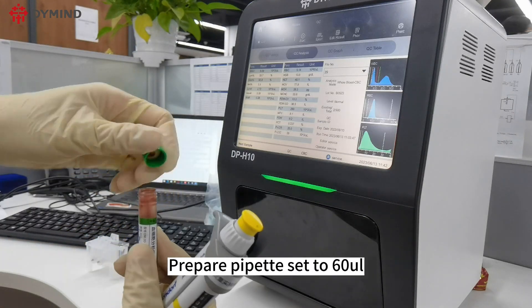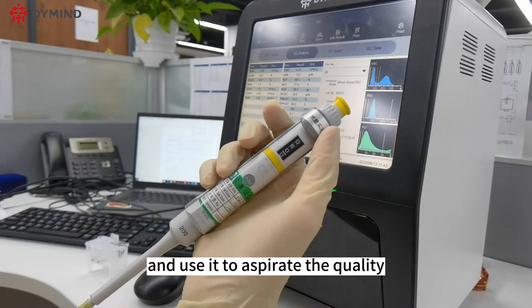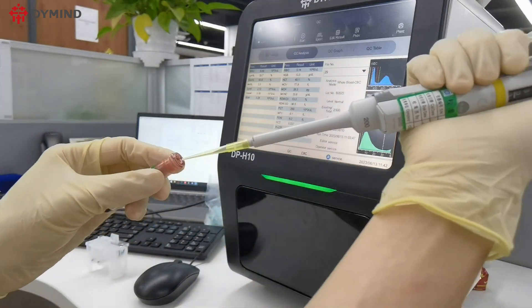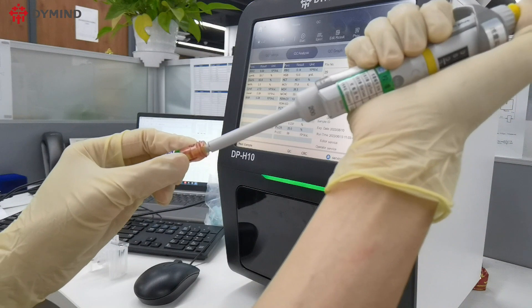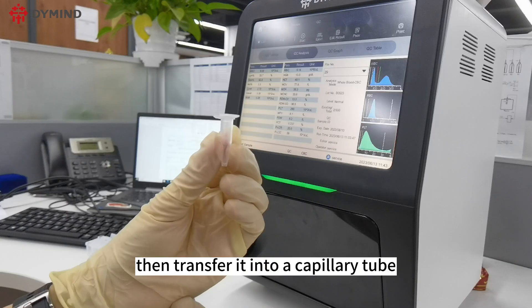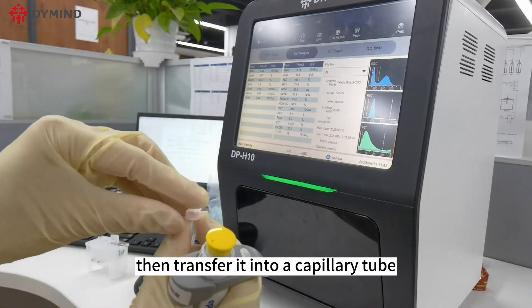Prepare a pipette set to 60 µL and use it to aspirate the quality control reagent, then transfer it into a capillary tube.